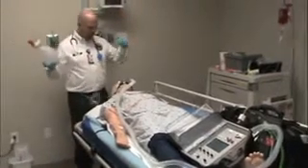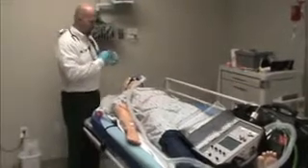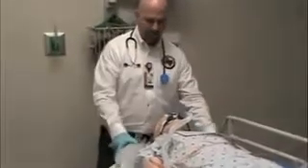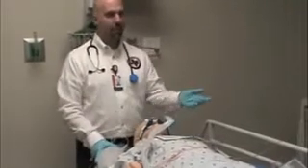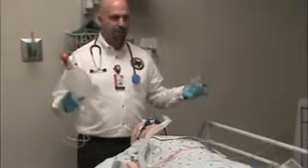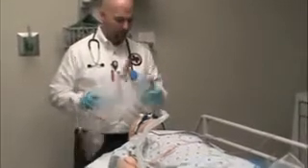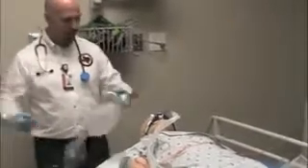And you want to make sure you always have the BVM mask that goes with the BVM. I've seen some pretty tragic scenarios where a crew would have the ventilator, they would have a BVM, and then something would happen and the tube would get displaced. If the tube gets displaced and I don't have basic airway adjuncts to put together, then I can't ventilate the patient. And if we paralyze them or deeply sedated them, then we've set them up for a big problem. So always make sure that you keep your BVM and your mask together.